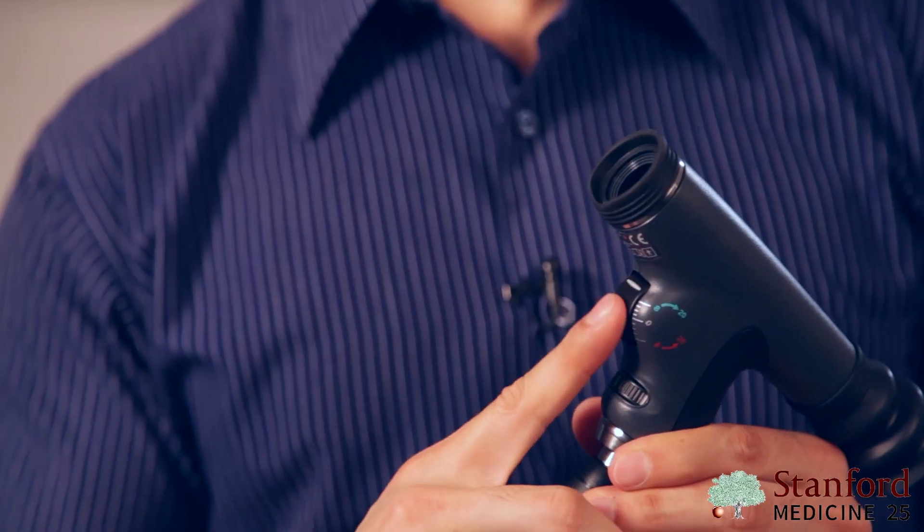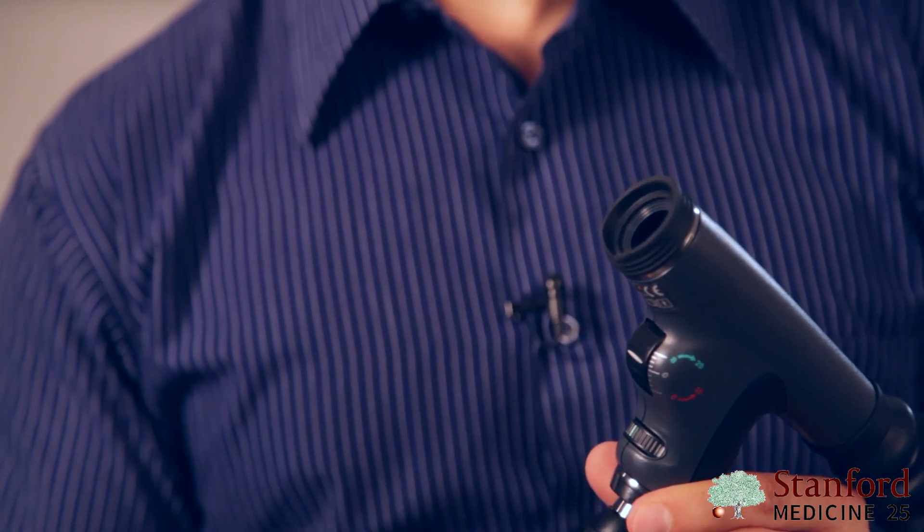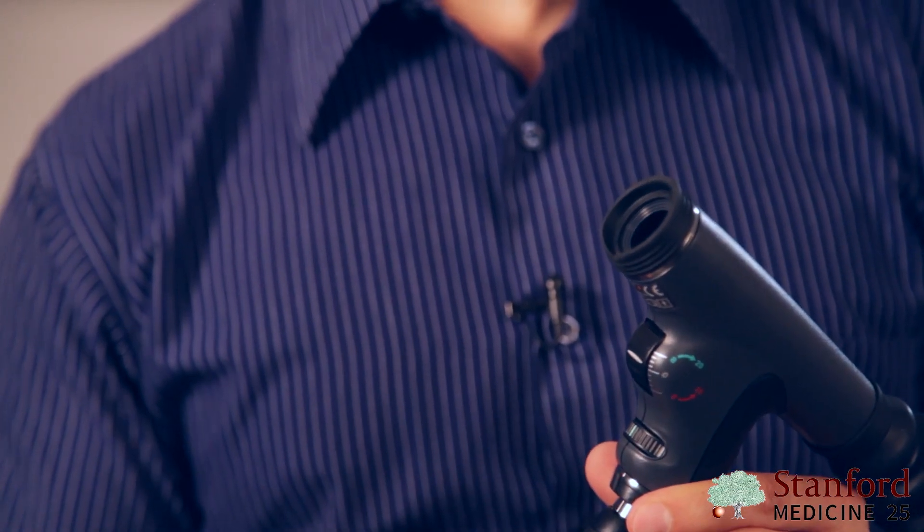Before we start the demonstration, I need to make sure this setting is adjusted for my vision. I look at something about 10 to 15 feet away and make sure it's in focus. After that, it's very unlikely I need to touch this setting again. If you have 20/20 vision or contacts that give you 20/20, you don't have to do anything other than leave it right at zero.